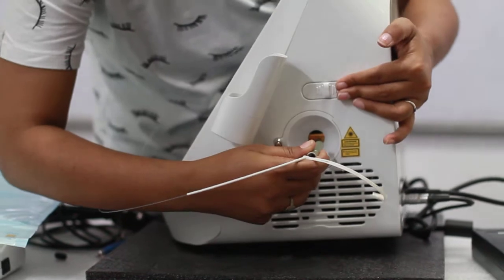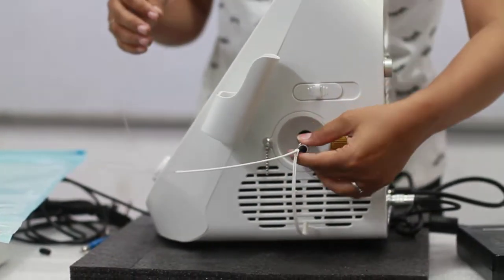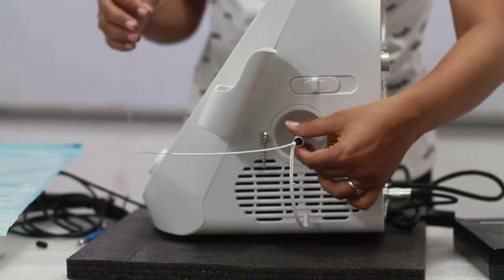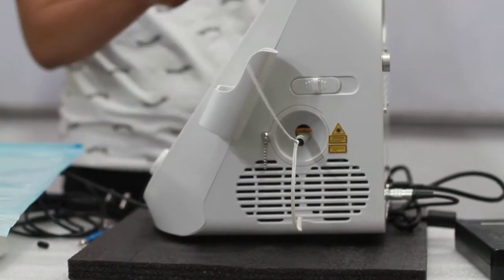Take it here and just roll this silver. And once it is tight, you have connected your fiber.